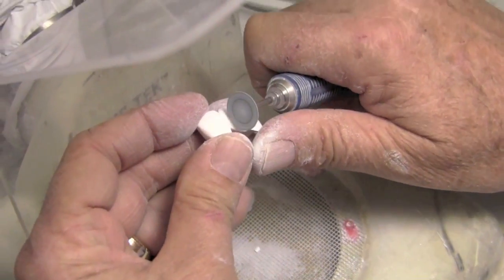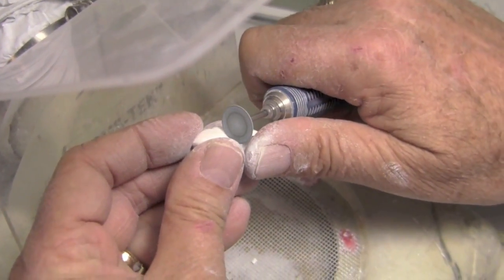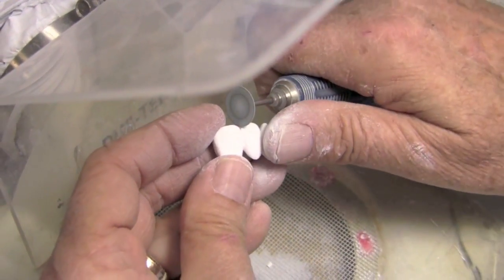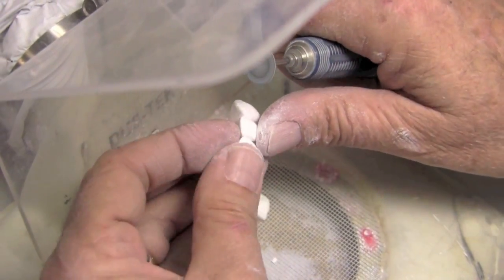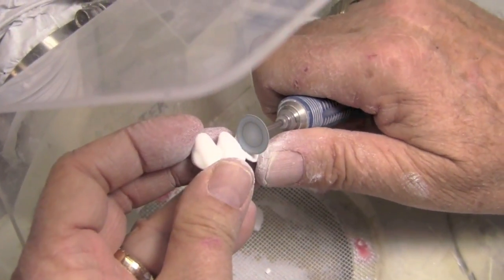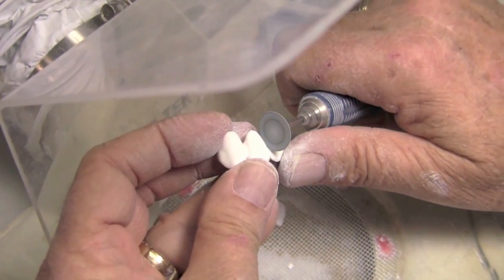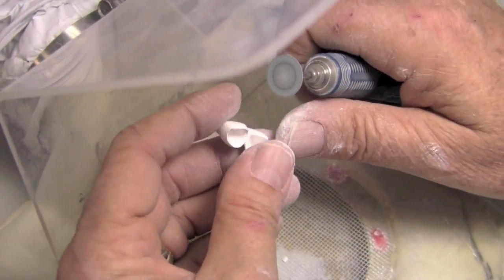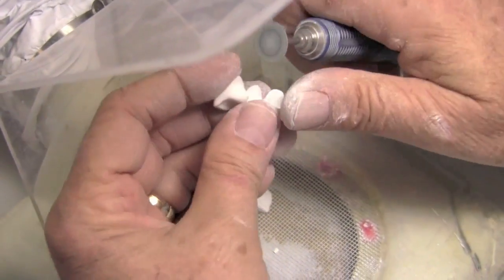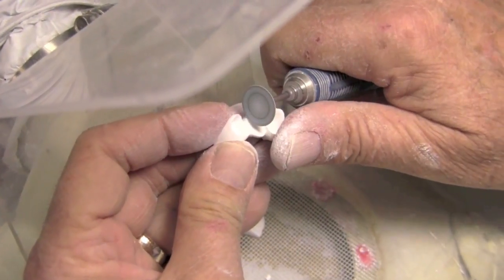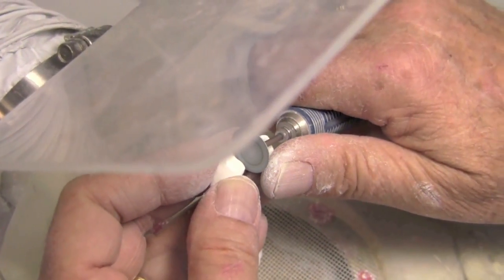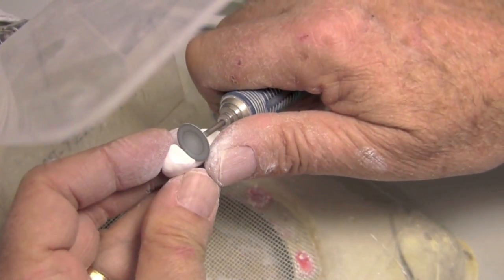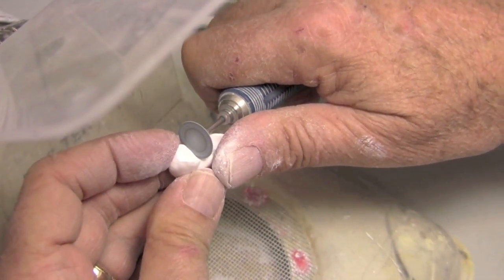And again, I don't really go underneath. I don't want, I want to keep this for strength down here. So, and while this doesn't look real sharp right now, it's plenty. And once it shrinks, it will be a really nice looking embrasure once we sinter this and get the shrinkage. And so, while I'm doing this, I've saved my interproximal margins so that I can come in for like, with this on the side and just thin them with a little of the edge of this disc right there. And just thin these margins right down to a knife edge.